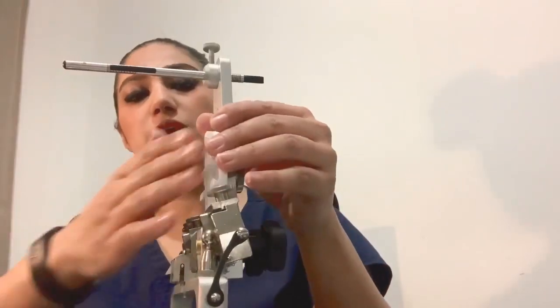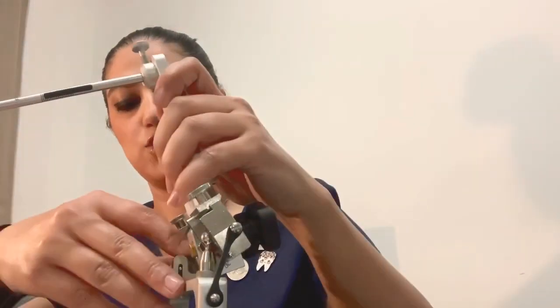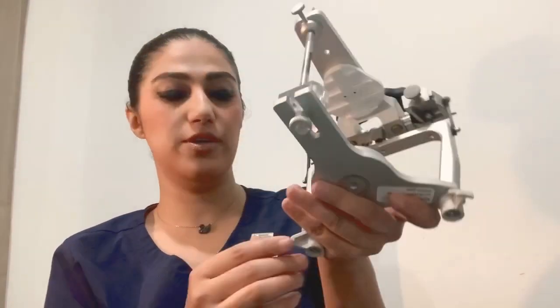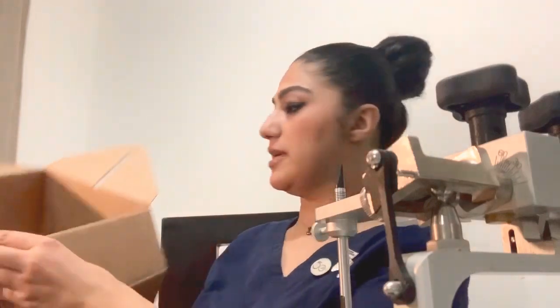As you can see, there is a mounting plate and you can attach or detach the mounting plates. There are two stabilizers here — this is the stabilizer, and you can stabilize your articulator on the table. They can move 360 degrees very easily.